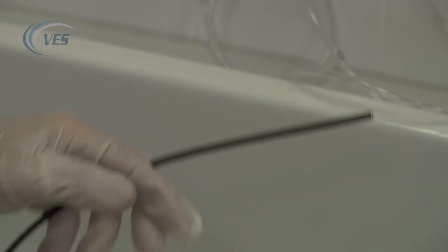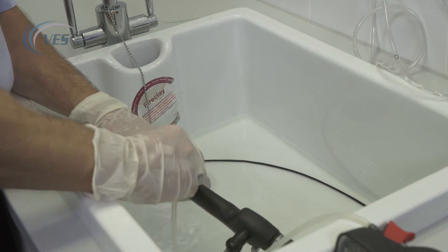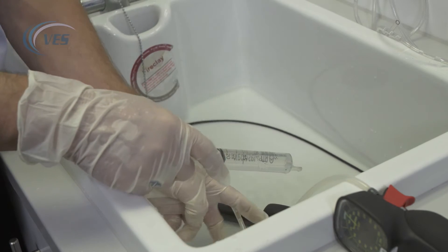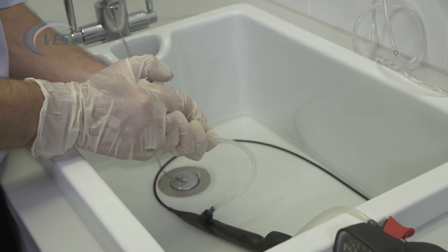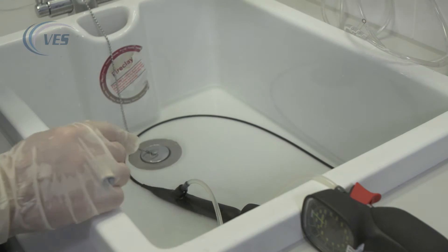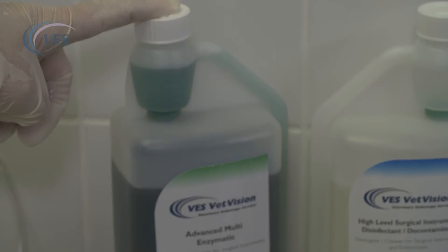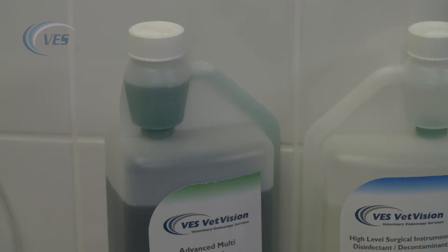We clean the brush. Follow your manufacturer's guidelines for dilution rates. The timing for immersion is 10 minutes and the scope shouldn't be left in the chemistry for any longer than the allotted time. We now let that sit for 10 minutes.